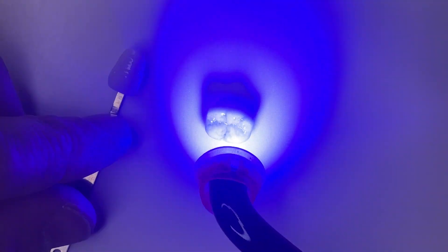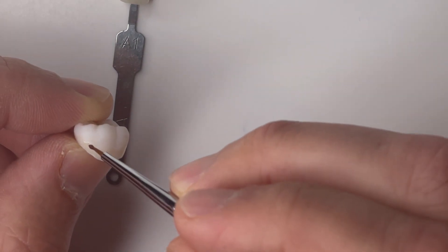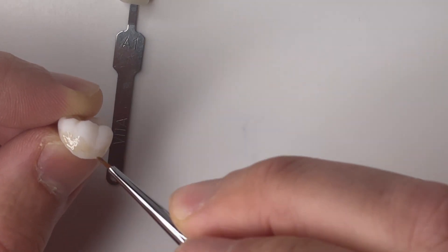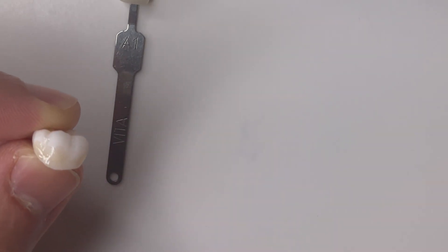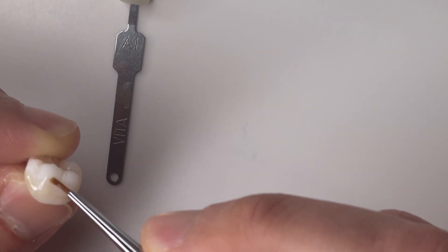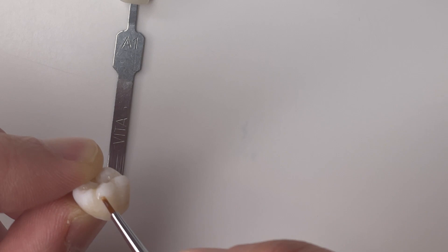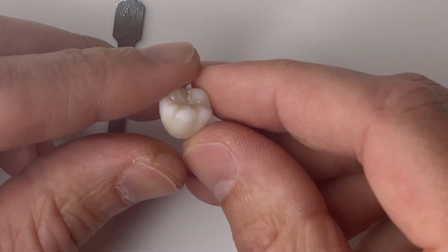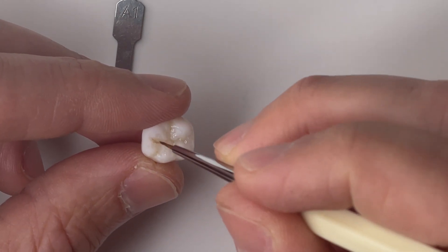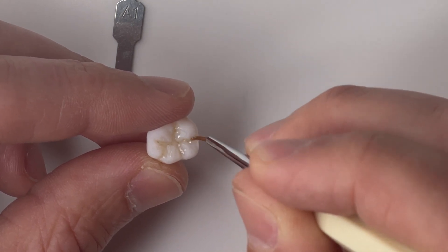We have a little bit more of that buccal surface stained. Now I'm going to continue to add a third layer — also to the cervical area but moving up over the rest of the tooth. That adds more and more stain in that cervical third to give us the most chroma there, but now I'm moving up almost all the way to the cusp tips to start adding a little bit of that A Plus over that surface.